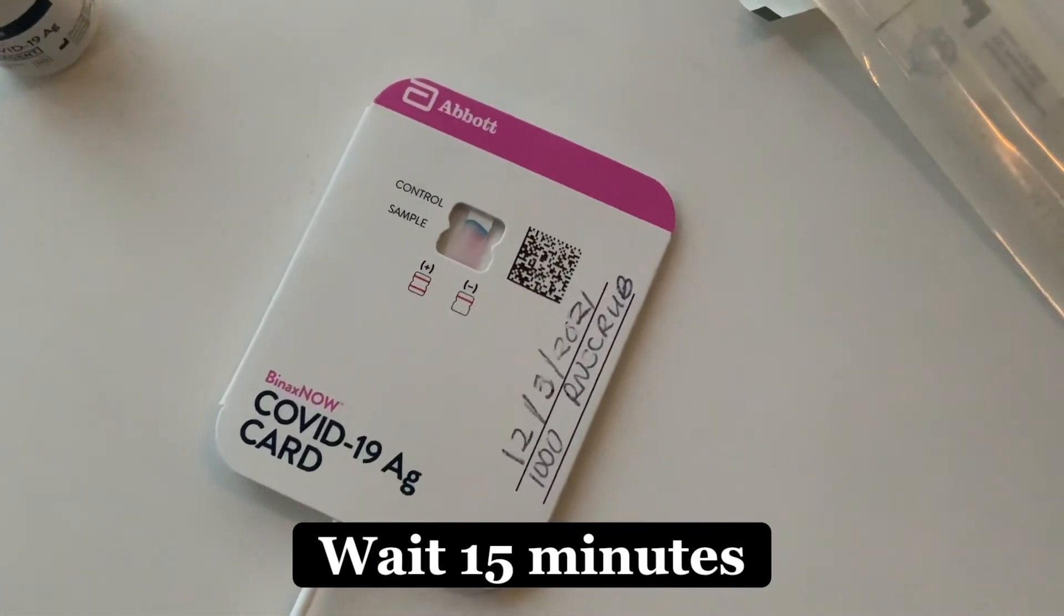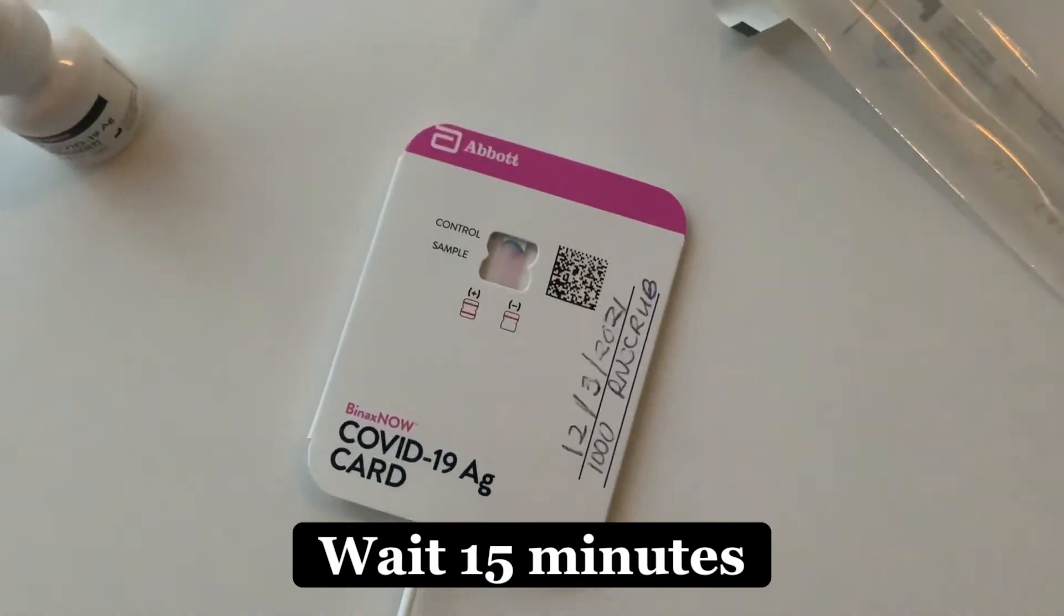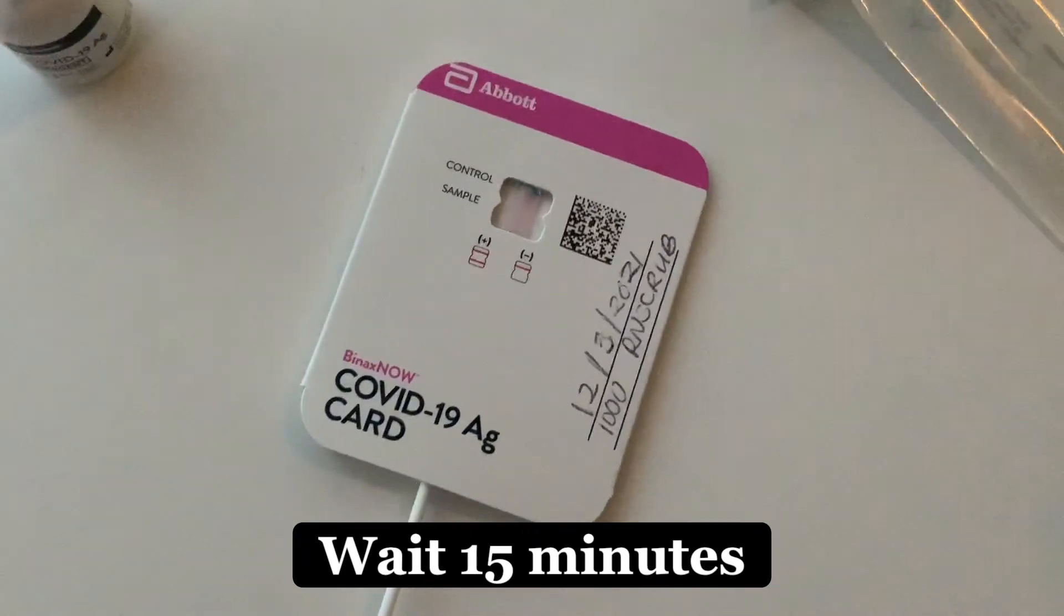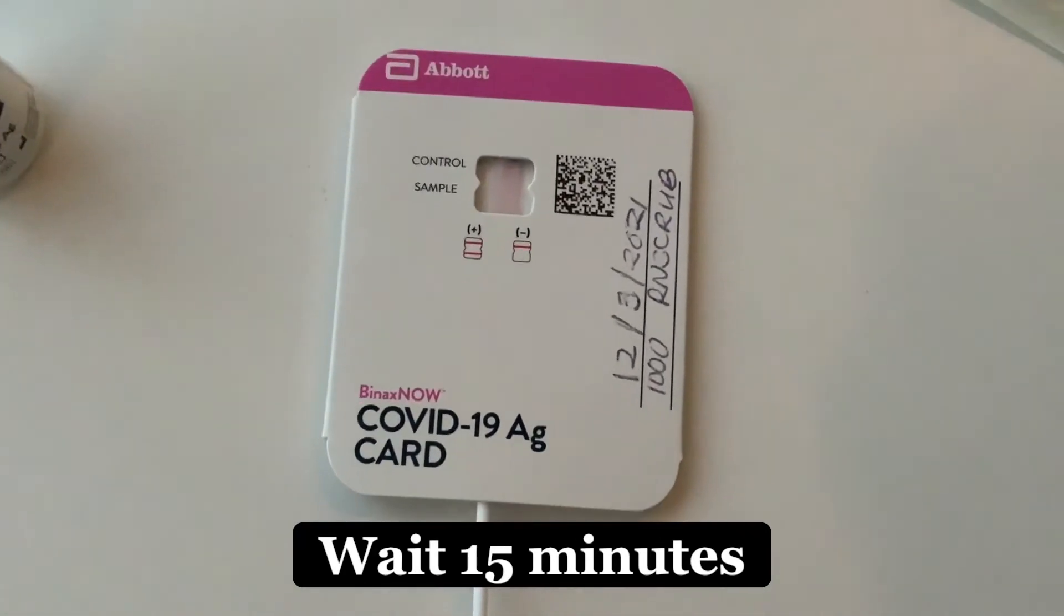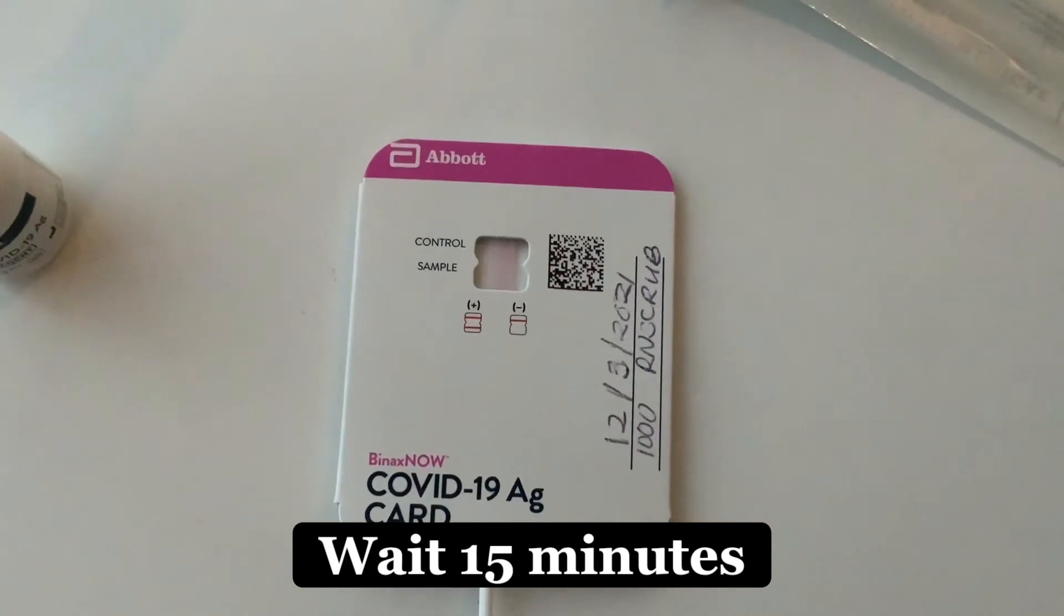As you can see here in the control window, you're going to look to see the blue is disappearing. Don't fret over that. It's supposed to disappear.